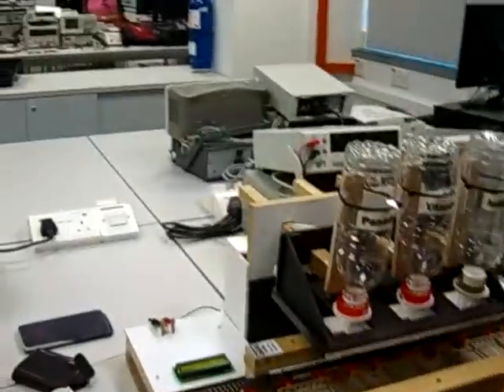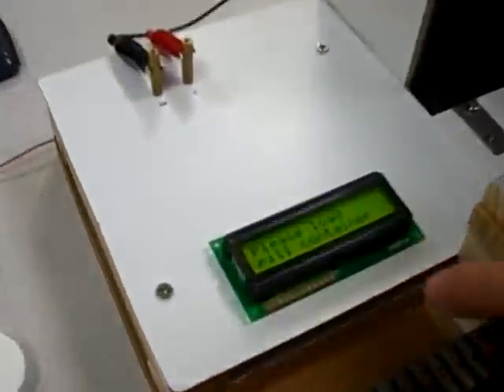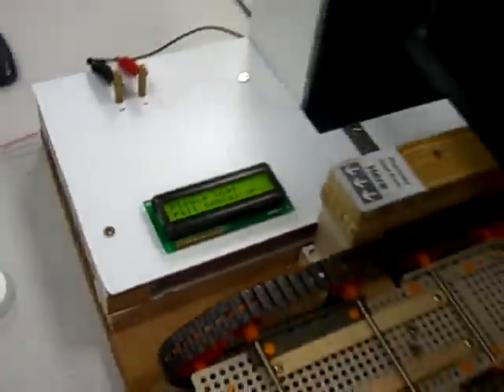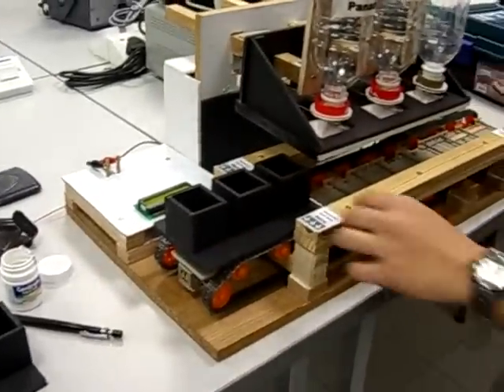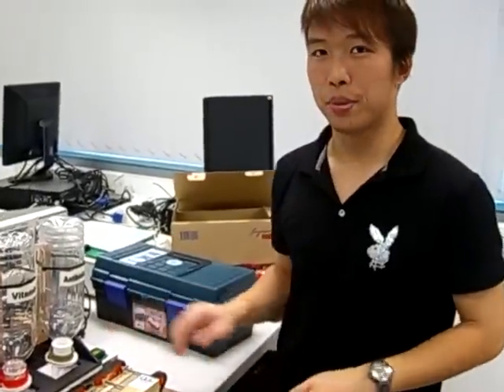Before the patient comes to the dispenser, it will say 'please load the container.' We have three medications, so we'll use a three-compartment container. And here it will say standby mode.